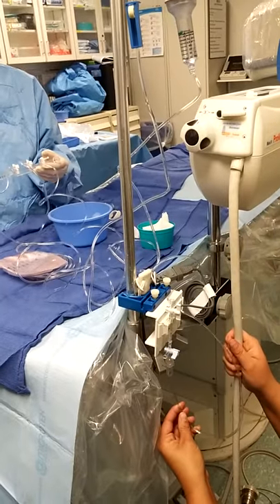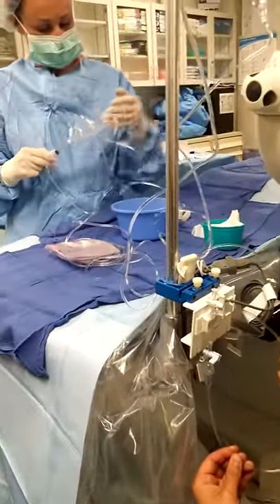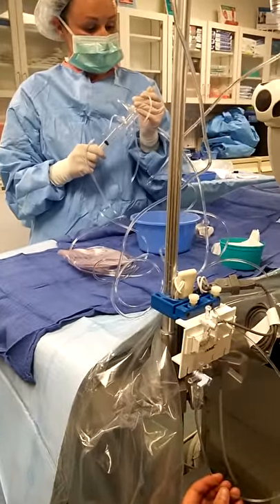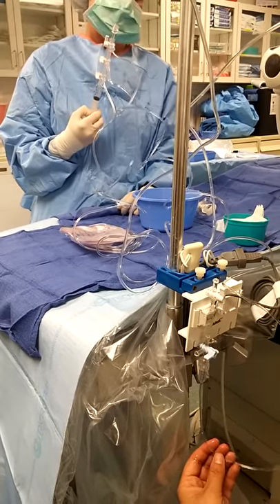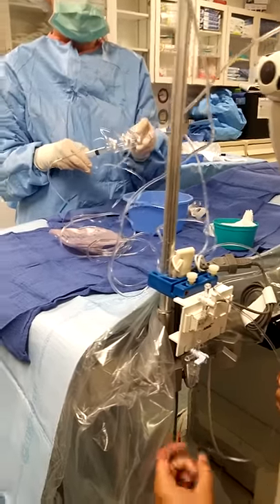All right, so it's coming to you. And then I have to draw back flush so that I can flush it towards her. I don't see any air on my end — you're good on mine. We'll do it for good measure. We like to do it about 5 to 10 seconds, even after you said it's beautiful. Off to you.